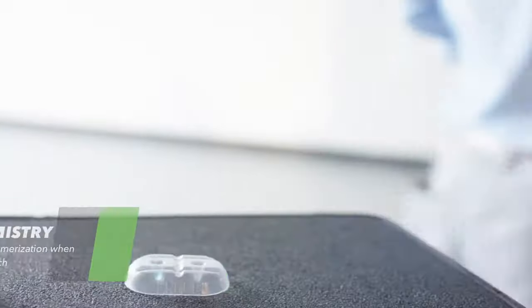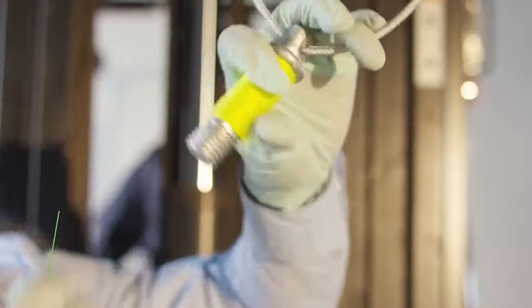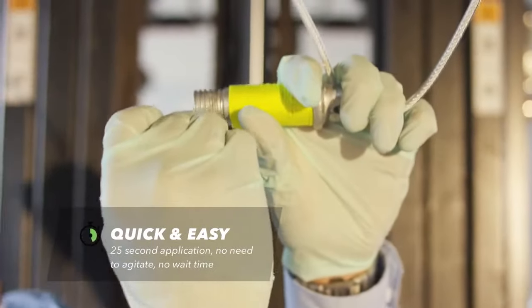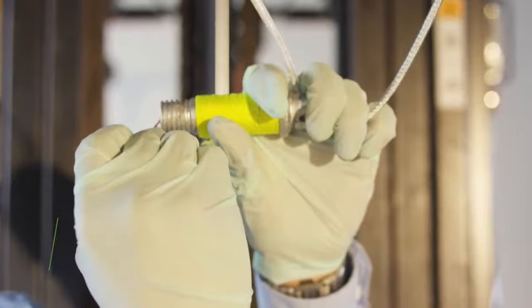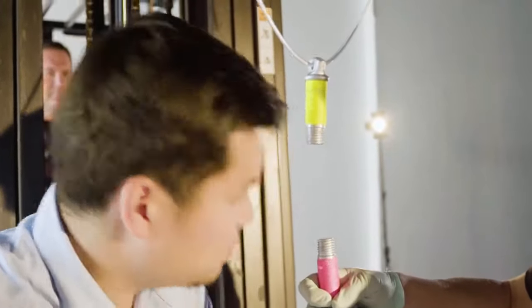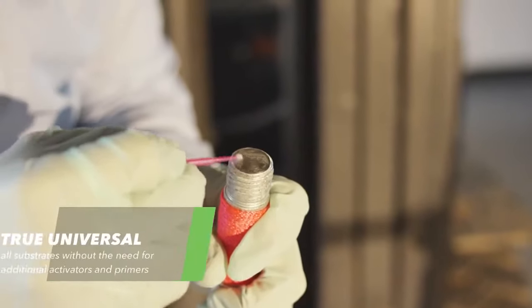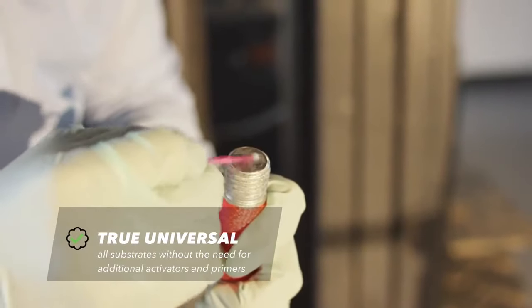As well as being able to bond to any substrate: ceramic, acrylic, metal, composite, without the need for additional primers and activators.